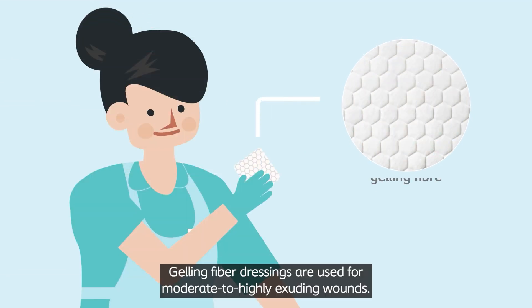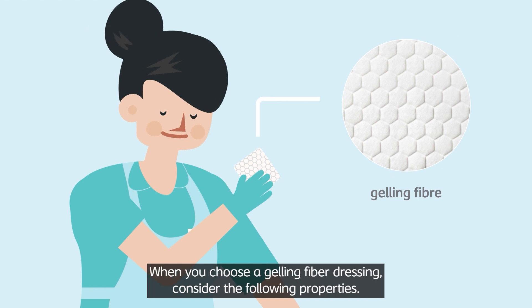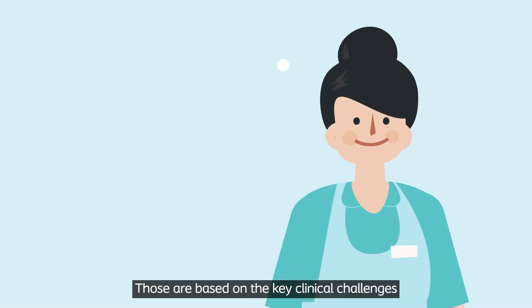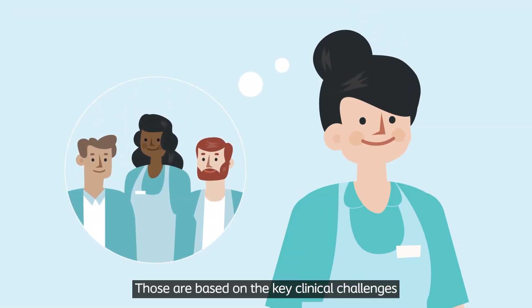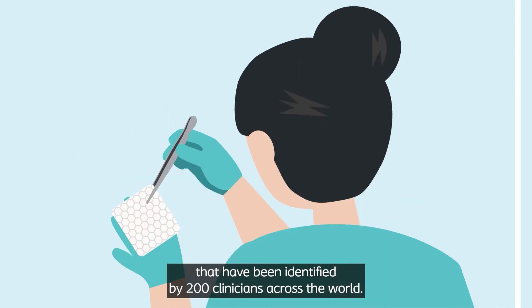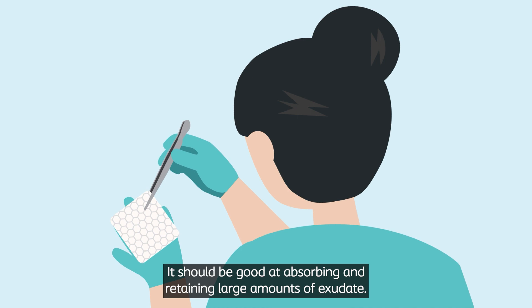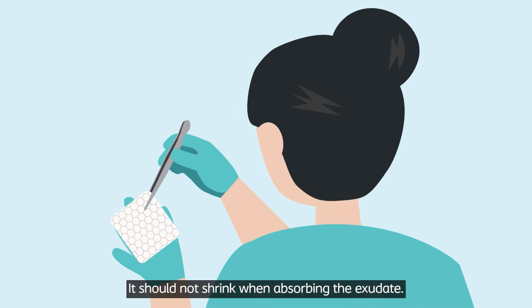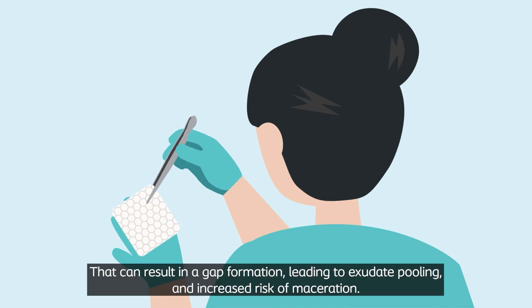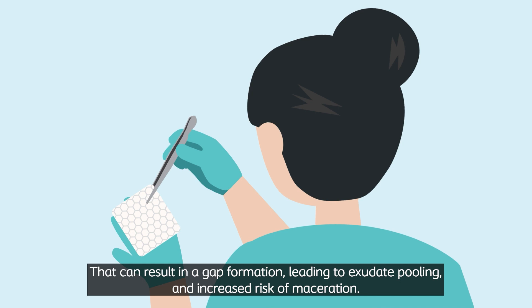Gelling fibre dressings are used for moderate to highly exuding wounds. When you choose a gelling fibre dressing, consider the following properties — those are based on the key clinical challenges identified by 200 clinicians across the world. It should be good at absorbing and retaining large amounts of exudate. It should not shrink when absorbing the exudate, as that can lead to gap formation, leading to exudate pooling and increased risk of maceration.